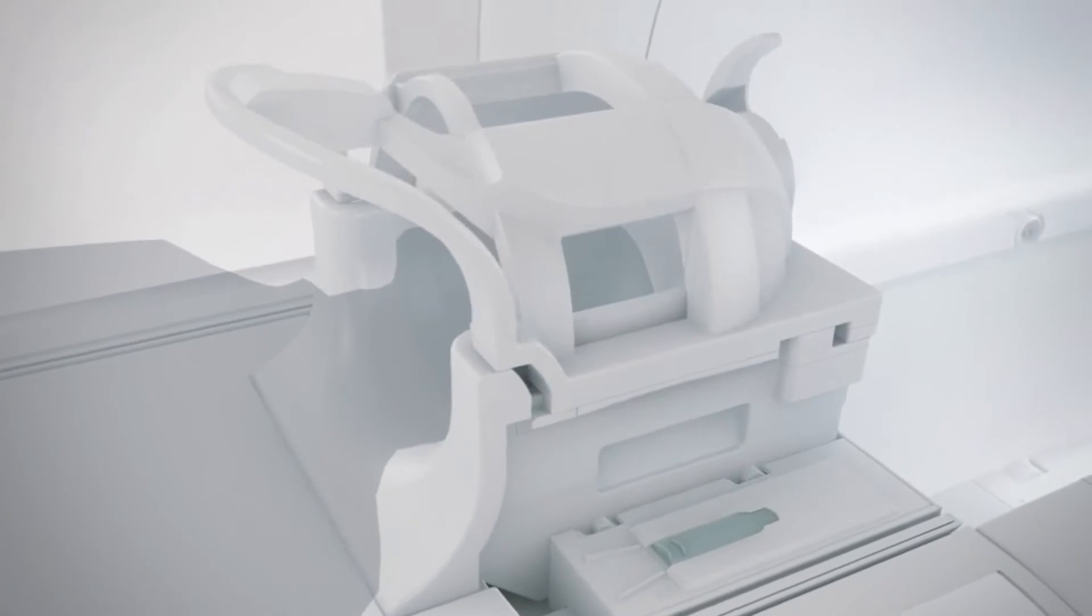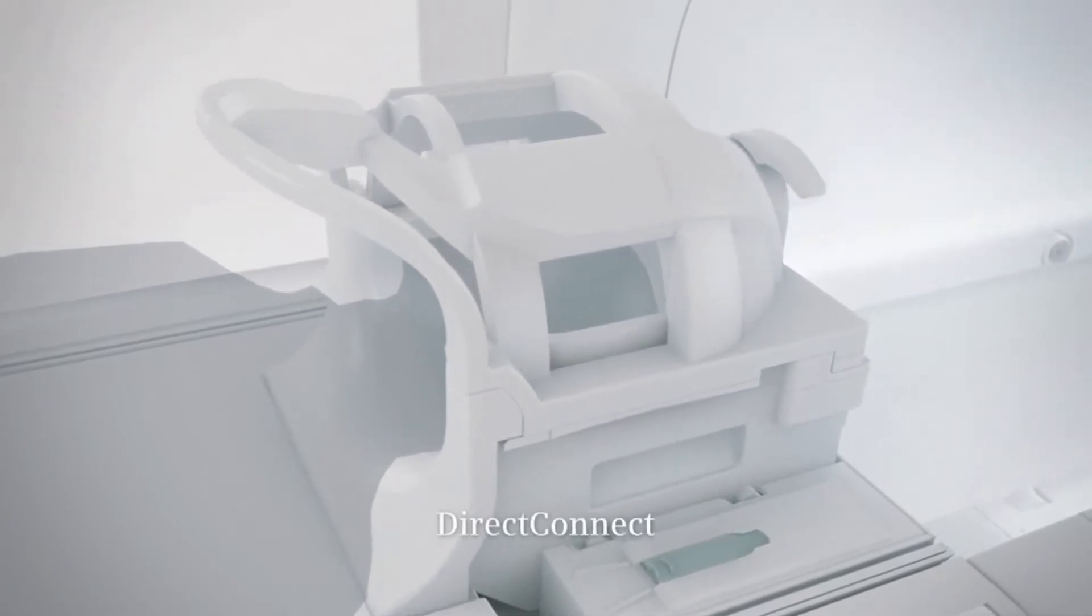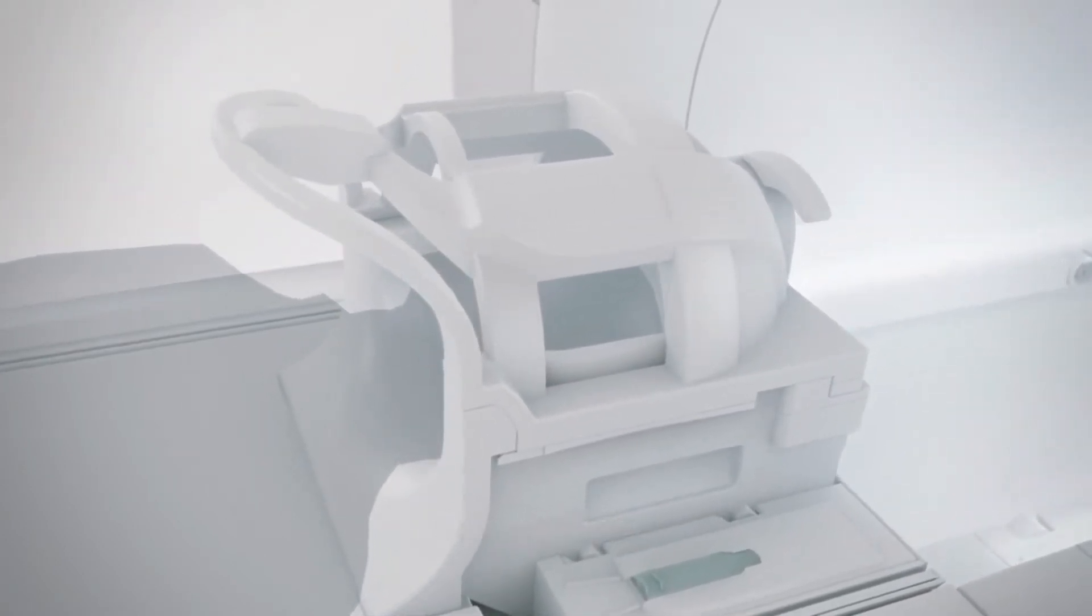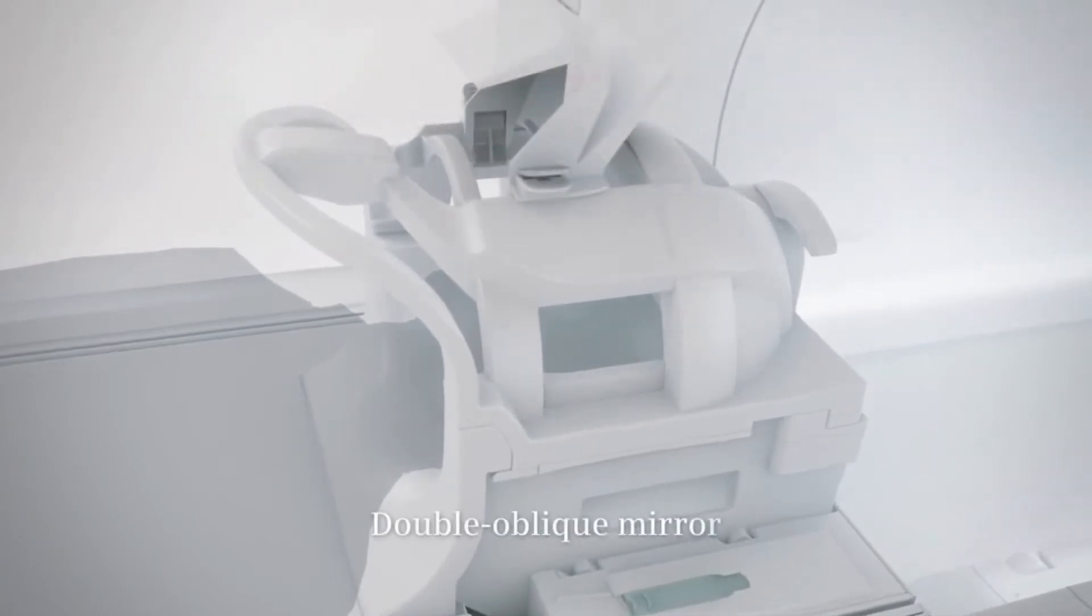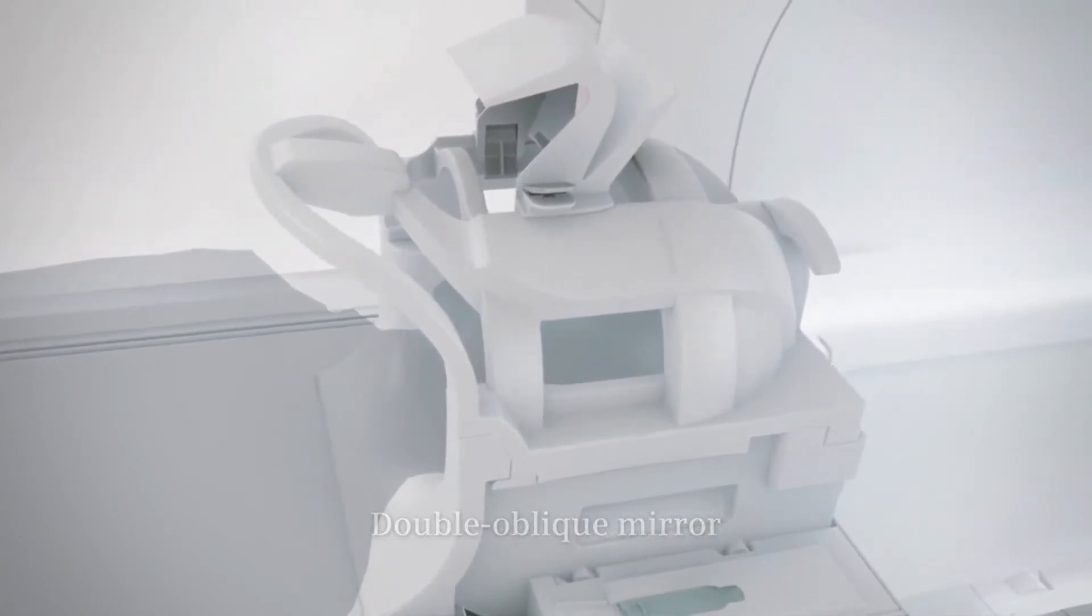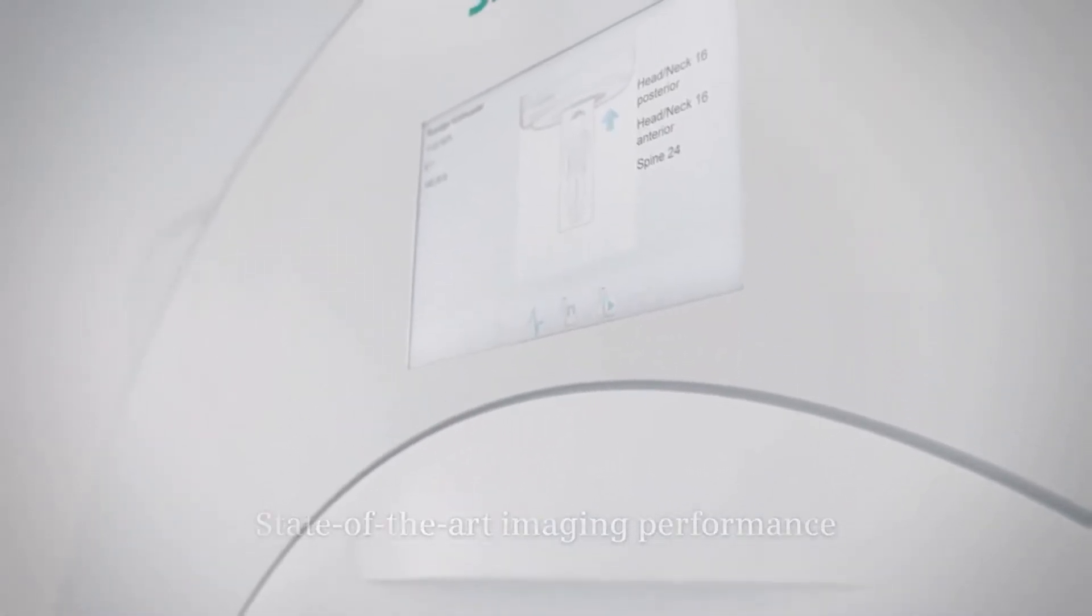Direct connect and cable-less coils allow fast and easy handling. Coil specific information is displayed in the dot display.